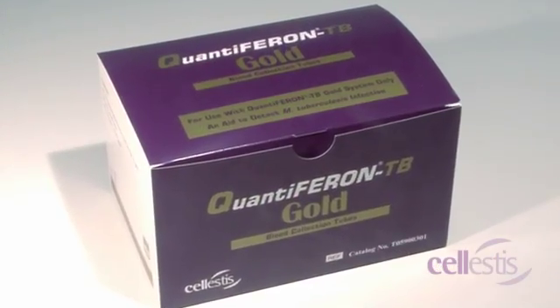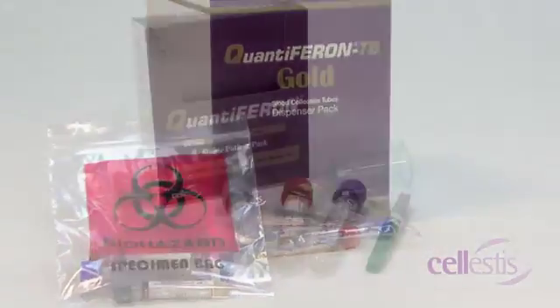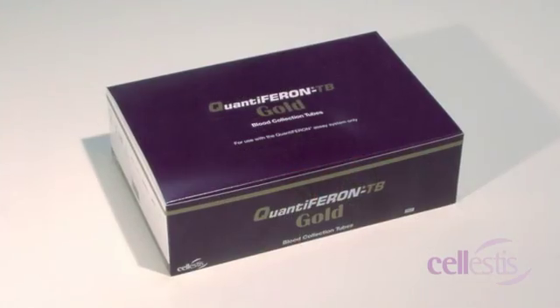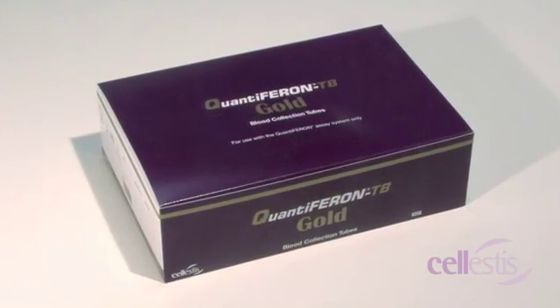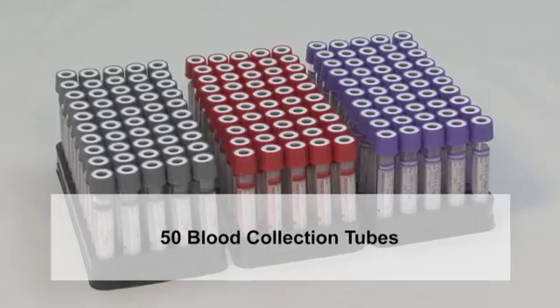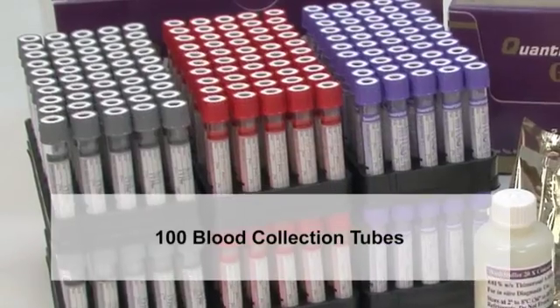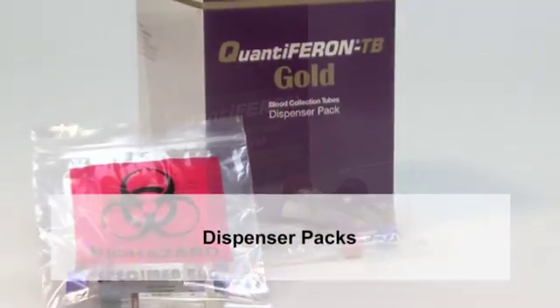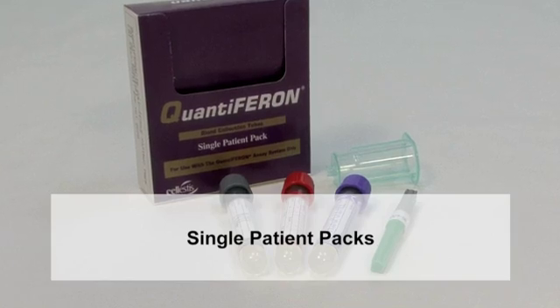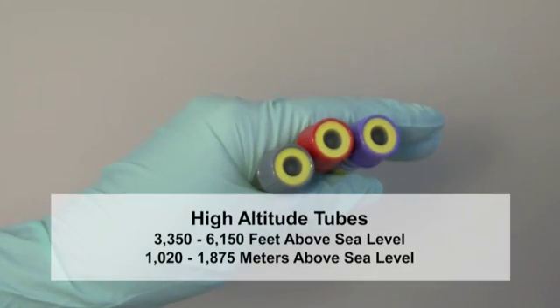Blood collection tubes are packaged in different formats that are specific to different regions. Tubes may be available as 50 tubes each, 100 tubes, dispenser packs and single patient packs. Also available are high altitude tubes.